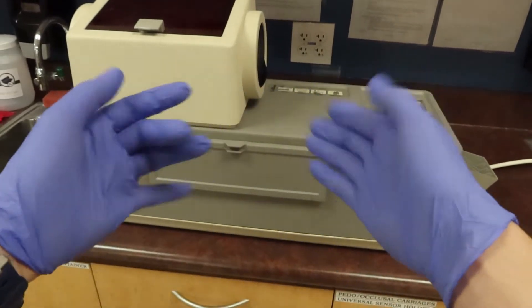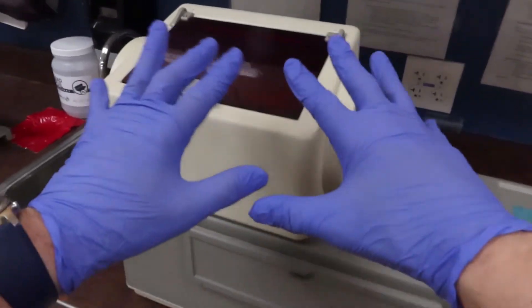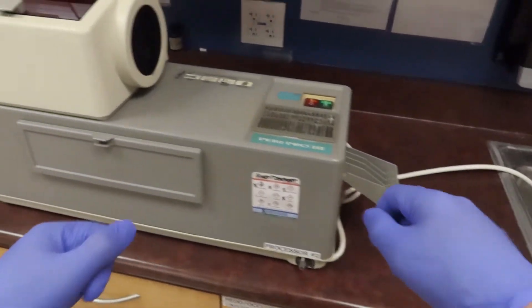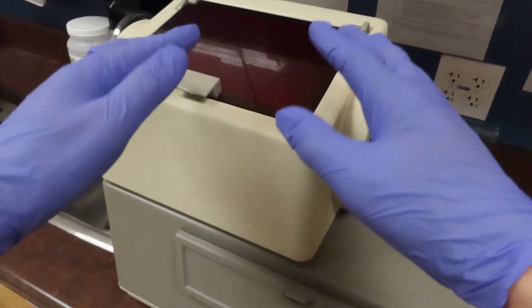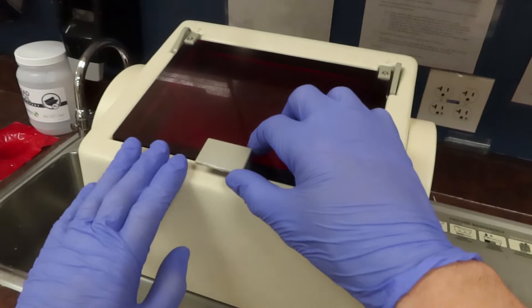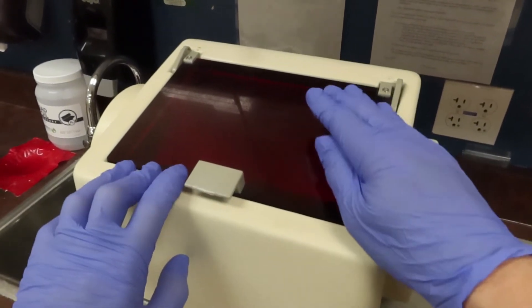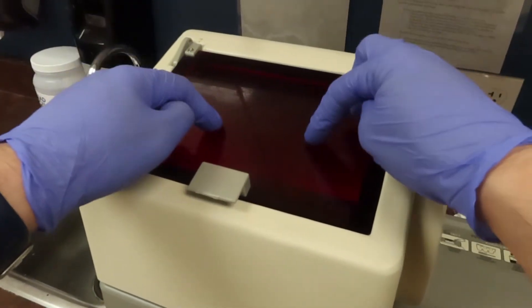As we look at all the different compartments, let's start right here at the top where we actually load our x-rays. There's gonna be this little window that you will refuse to open while you actually have films in there until they are dropped into the system.